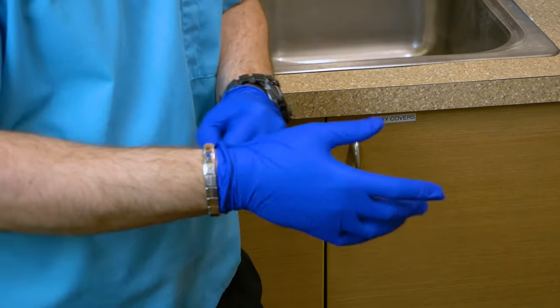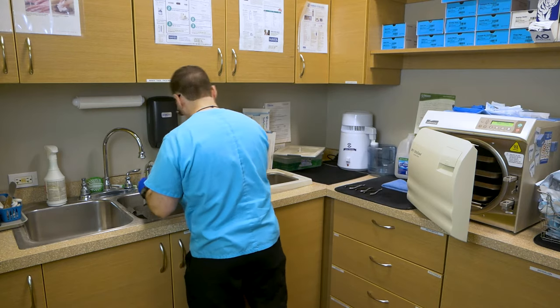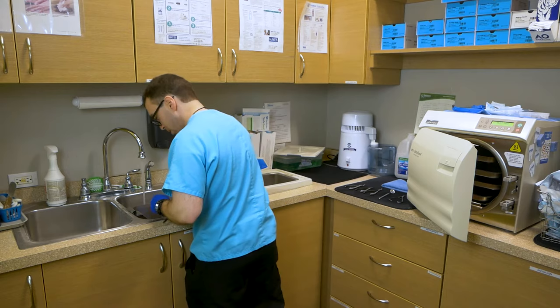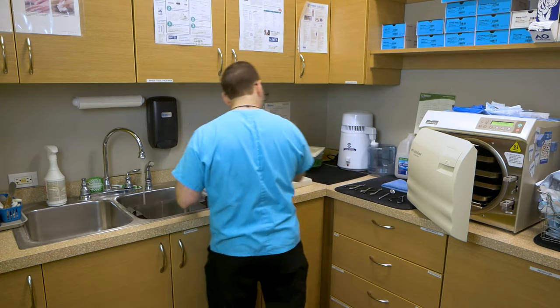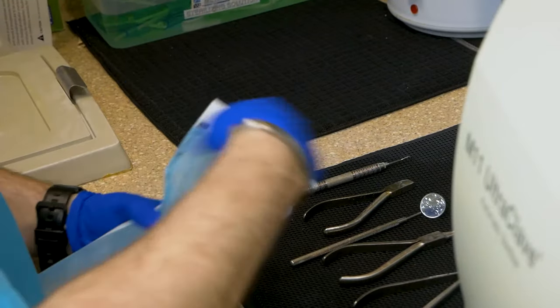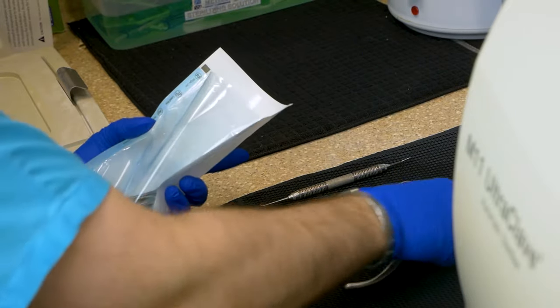As the sterile tech removes the instruments from the ultrasonic, they will organize the tools by type. This is when the sterile tech is able to create pouches for different functions. A pouch is a combination of tools used for a specific type of appointment.